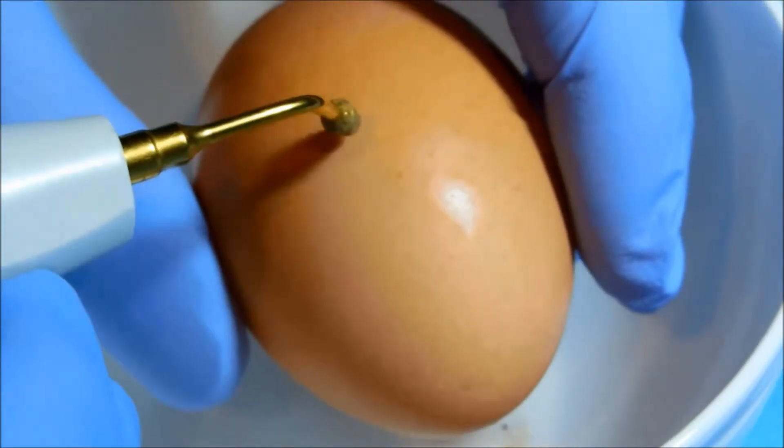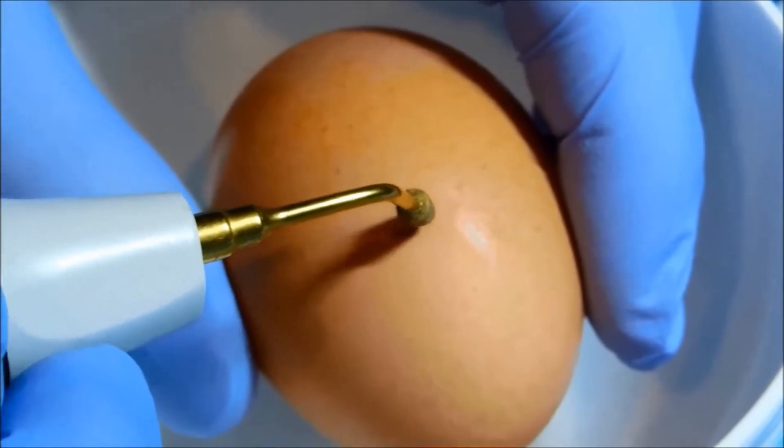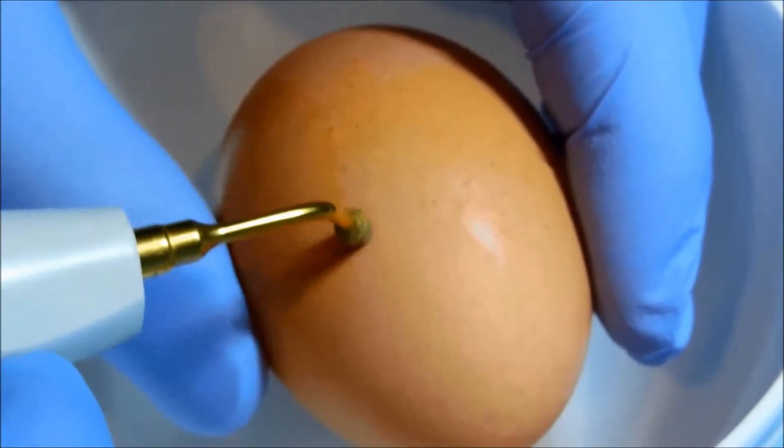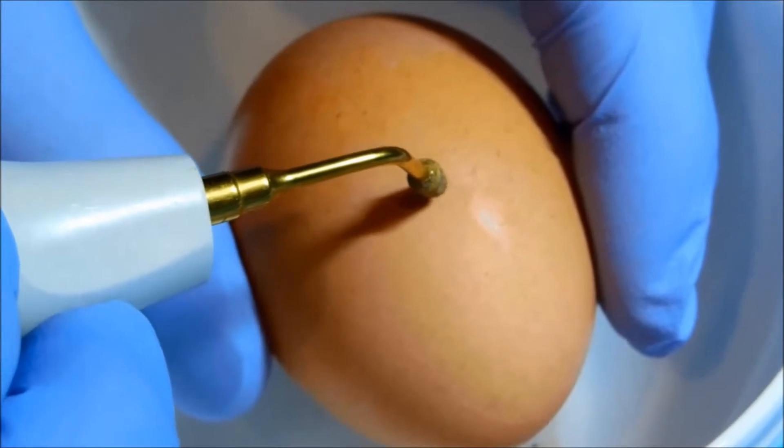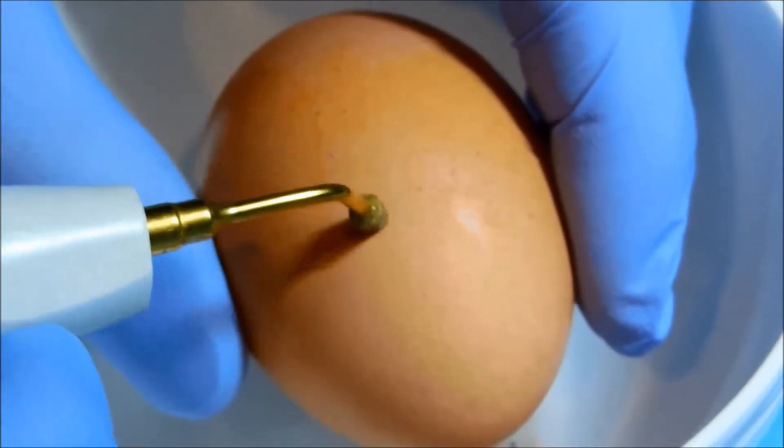And what I'm going to demonstrate is an uncooked egg. What I'm going to demonstrate is the removal of the shell of the egg without actually affecting or going through the membrane that's typically under the shell.